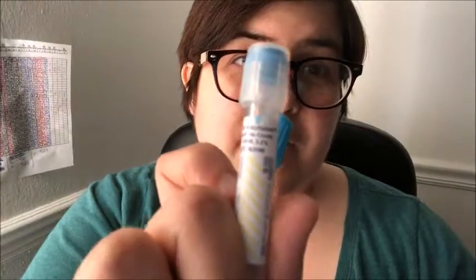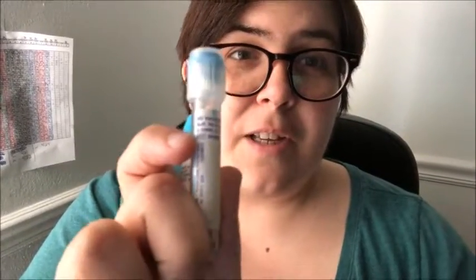This right here is your sodium citrate tube, and this one is actually the same as this one — it just has a clear topper over the light blue cap, which can be a little confusing. How do you figure that out? On the label, it will tell you exactly what additive is in the tube. For example, this one says sodium citrate and this one also says sodium citrate.